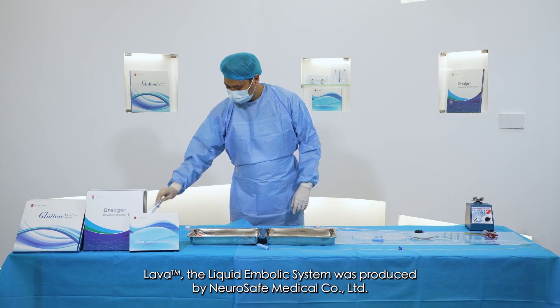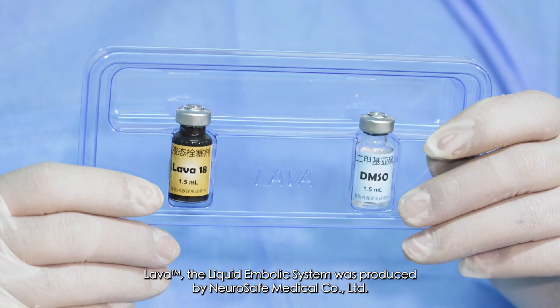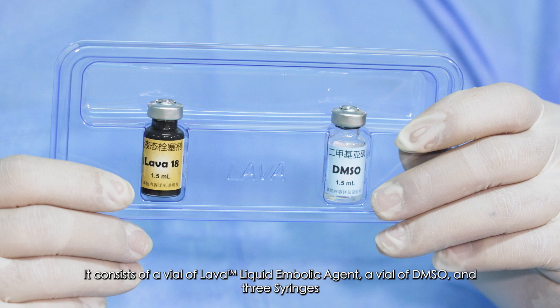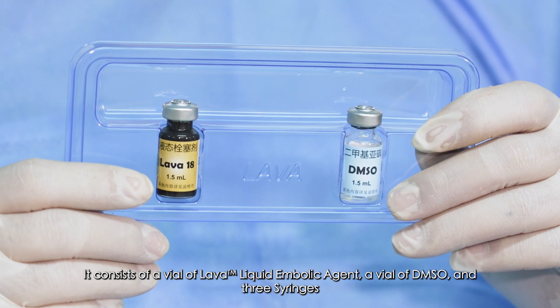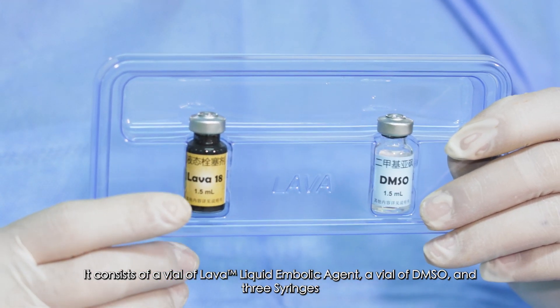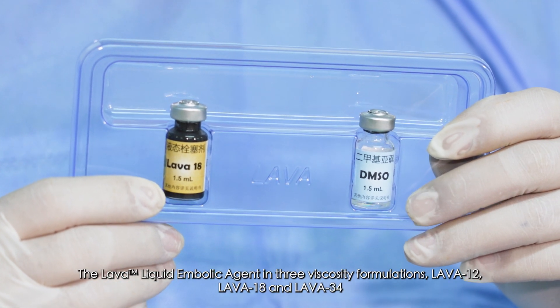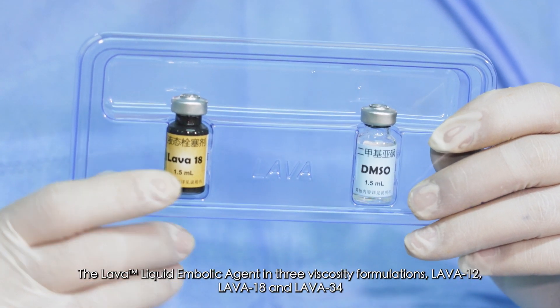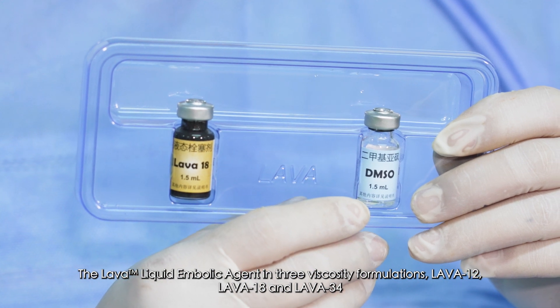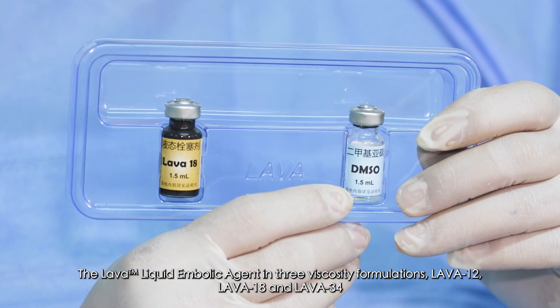Lava, the liquid embolic system, was produced by NeuroSafe Medical Corporation Ltd. It consists of a vial of lava liquid embolic agent, a vial of DMSO, and three syringes. The lava liquid embolic agent is available in three viscosity formulations: lava 12, lava 18, and lava 34.